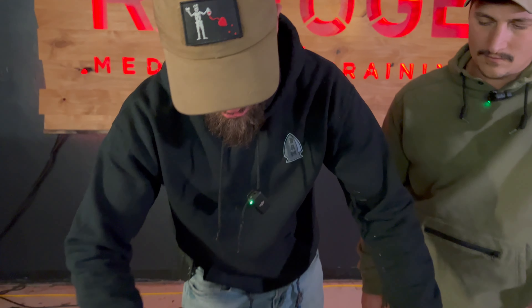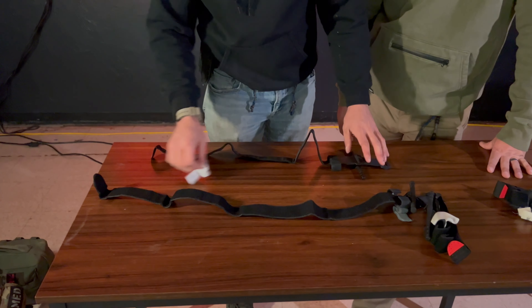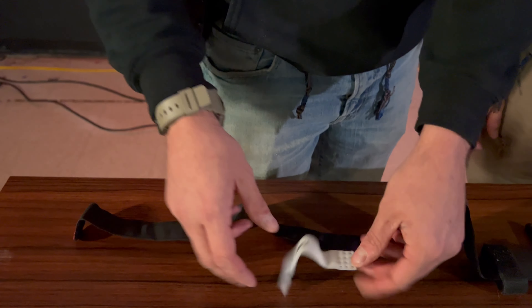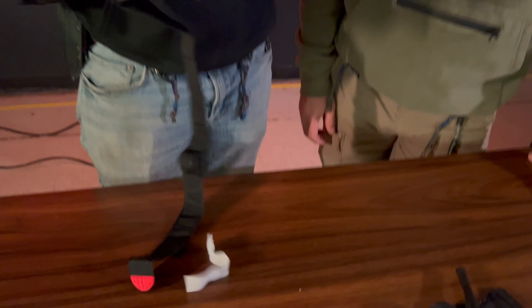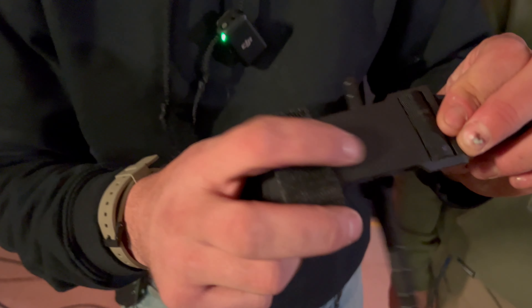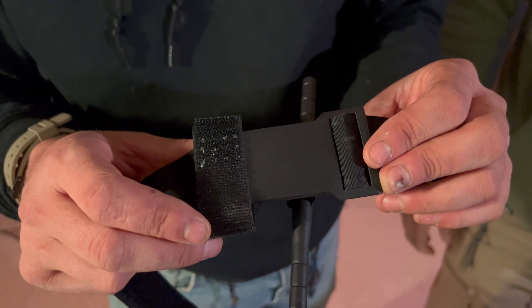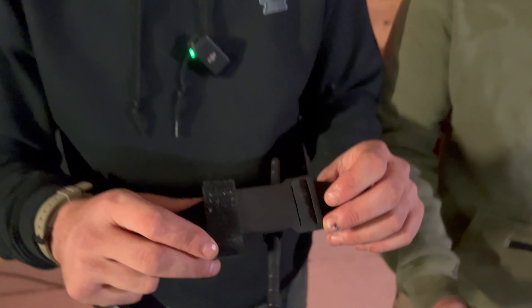The time tab is the same situation. I'll show you how easy it is to get this off the fake — you just rip it right off. I can't do that with a CAT. That same poking-through-with-a-heat-gun method, just getting a little glue on there.